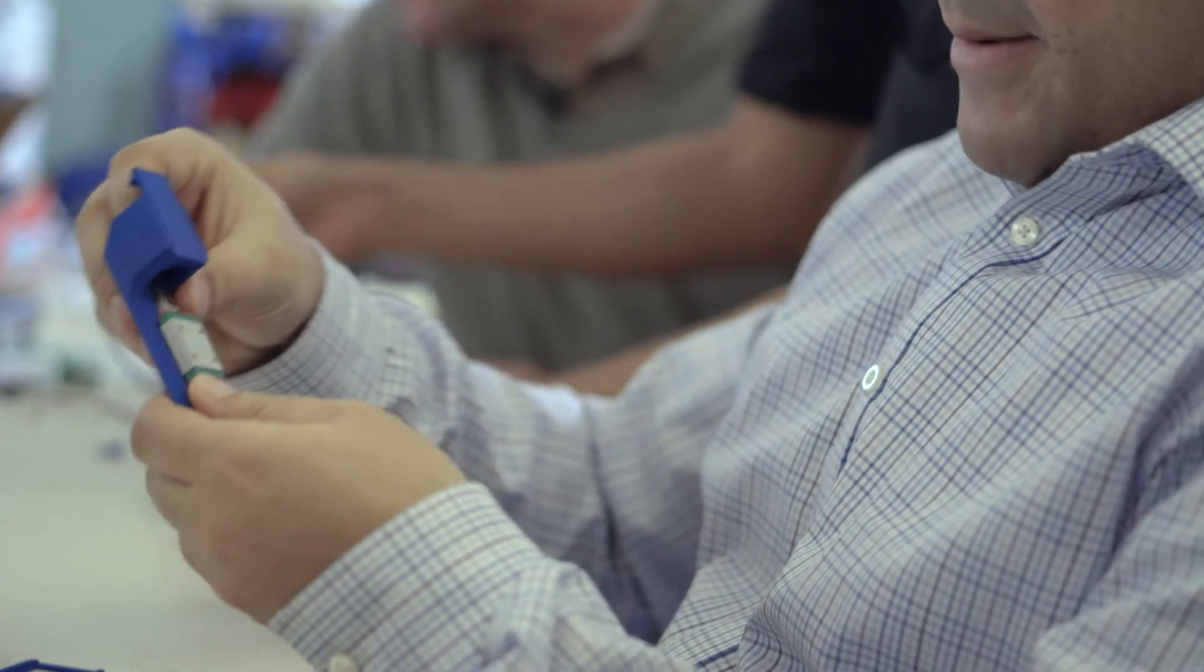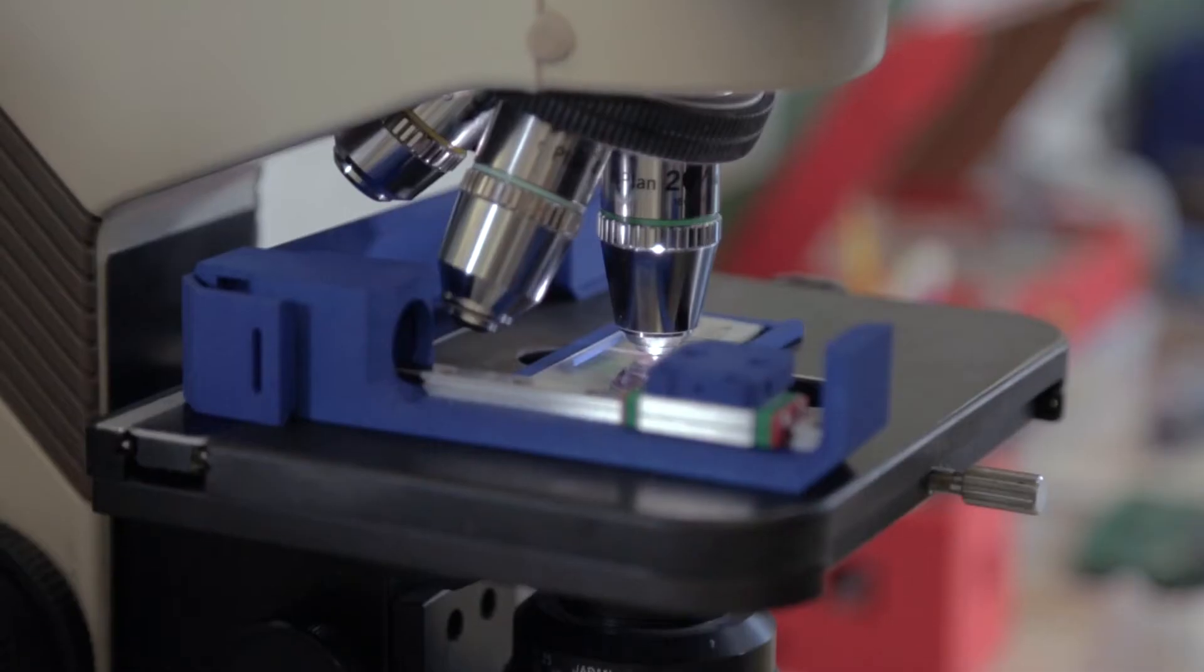We showed them that every other device and microscope that interacts with slides is very highly machined and engineered. That encouraged them to start looking into the different pieces that other machines that have to track that precisely use.